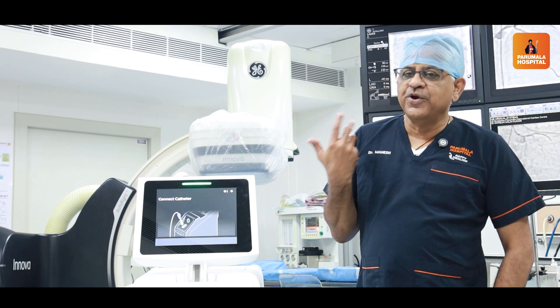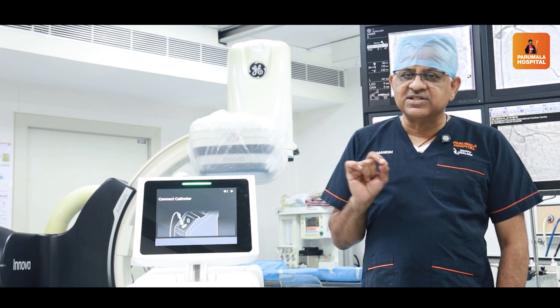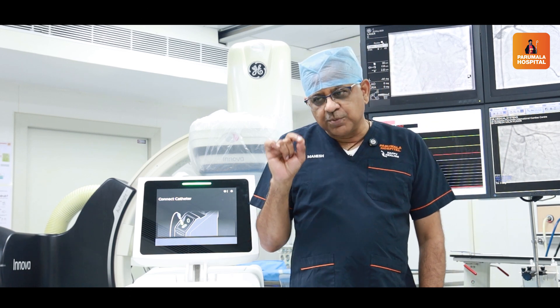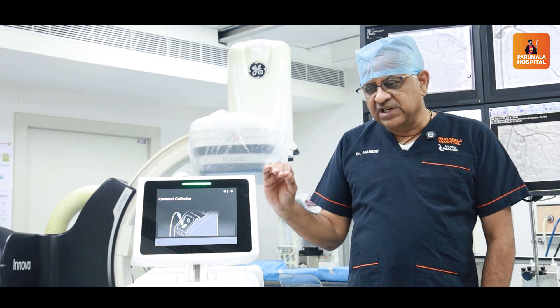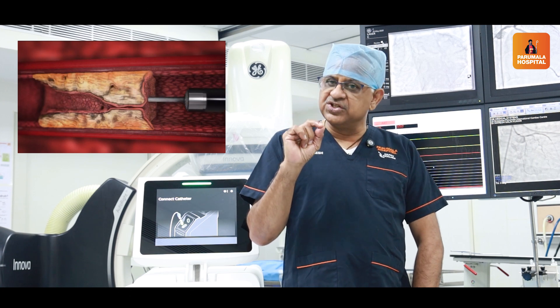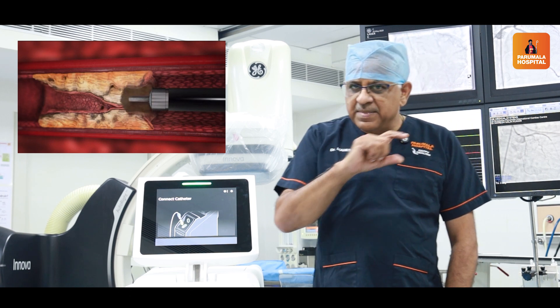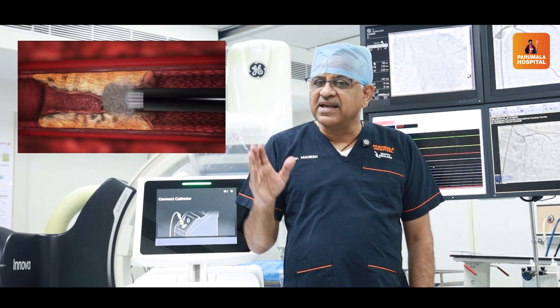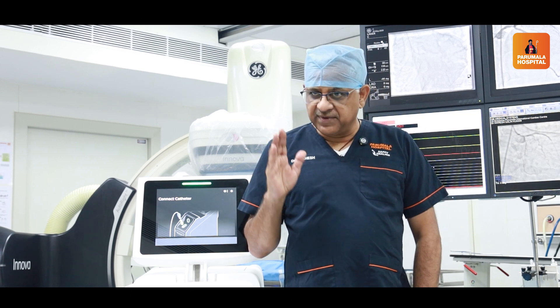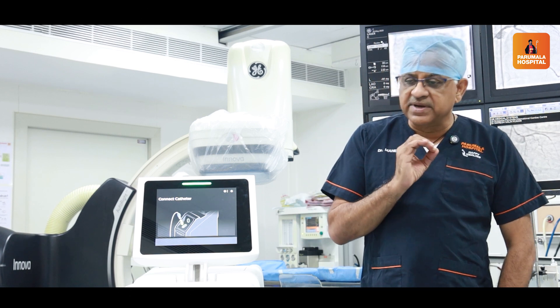The laser is not a panacea for all the ailments of the coronaries. It is for a very specific indication. The most common indication is to bail out the cardiologist when a wire has crossed but the lesion remains very difficult to cross. The most commonly used scenario is a fibrous lesion. The advantage is that it will break the bonds, damage the tissue, and soften the plaque, making crossing with a balloon or any other device much easier. In a non-calcific lesion that is predominantly fibrous, where calcium modification may not work, the ideal treatment is laser.